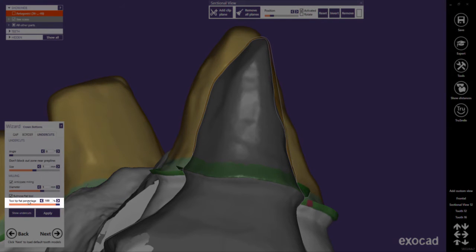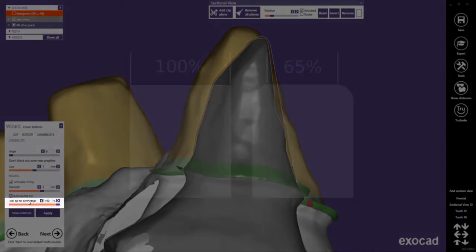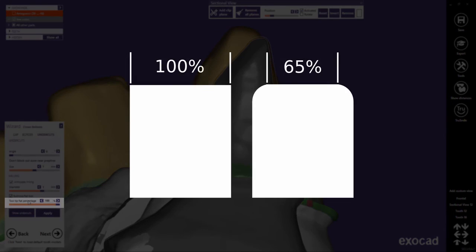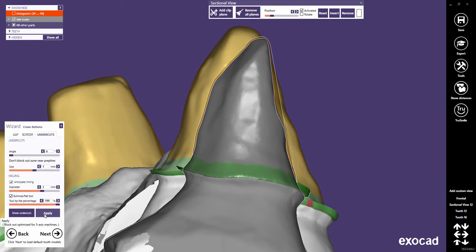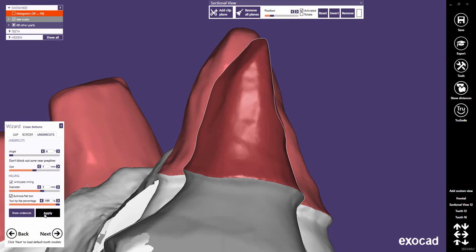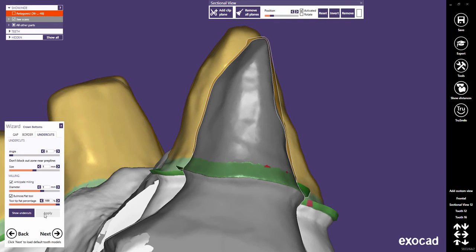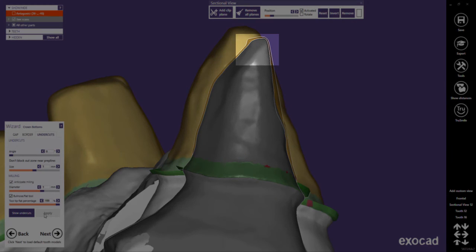Tooltip Flat percentage should be used to adjust the tool shape. Here is a graphic to explain the percentage value when the Bullnose Tool is used. Changes in the undercut settings always have to be applied. The tool compensation looks flat now.